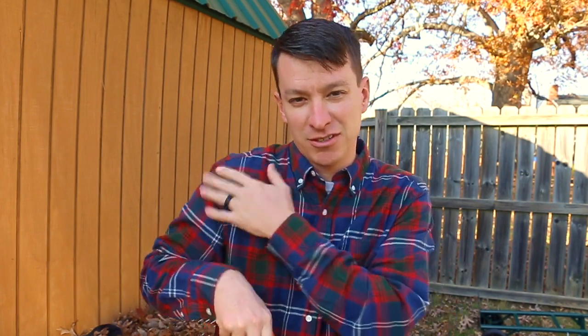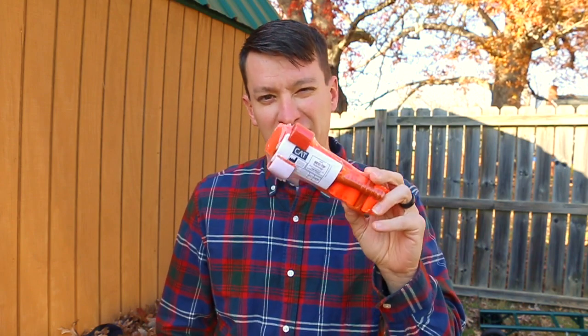I suggest taking it out of the packaging and putting it in a holder that you can reach with both arms. That way, if this arm gets damaged, you can reach it with the other arm. If either arm gets damaged, you can still pull it out with the other one — so you can deploy it in about 45 seconds. Think about that as you figure out where you're going to put your holster and where you're going to keep your tourniquet.